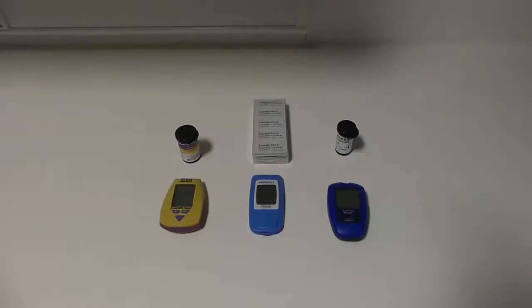As previously mentioned we have a variety of portable lactate analyzers in which we have multiples of each of the three of these analyzers. We have the Lactate Plus which is the yellow one which we used in the video, the middle which is the Lactate Pro 2, and on the right hand side we have the Lactate Scout analyzer, each with their own specific test strips.